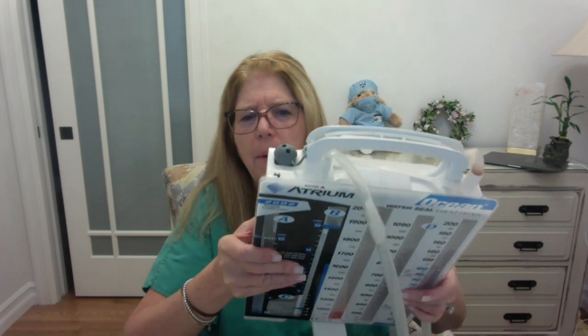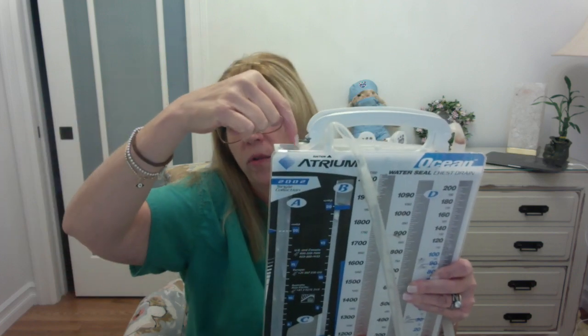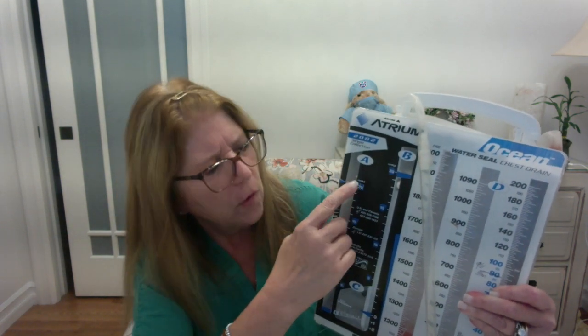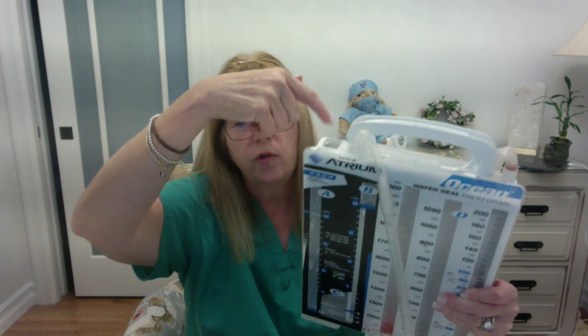Again, at the top of the drainage device, there is a plug here. We're going to open that plug, and we're going to take some sterile normal saline, not water, sterile normal saline, and fill up this suction chamber all the way to whatever the prescriber orders. Most likely, again, it's going to be this 20. So we fill up through here with sterile saline to the 20, and then we know that we are providing that 20 centimeters of water suction.